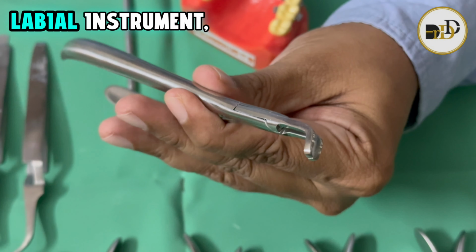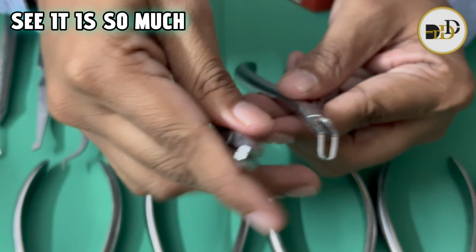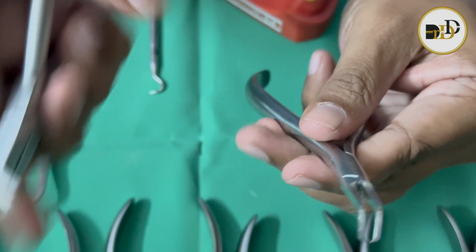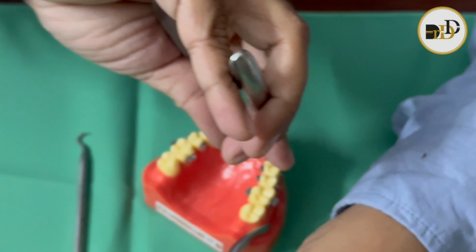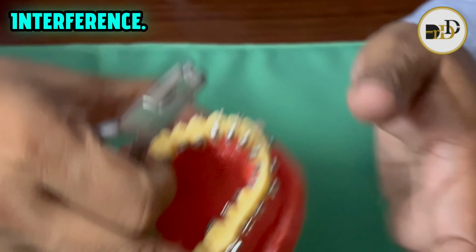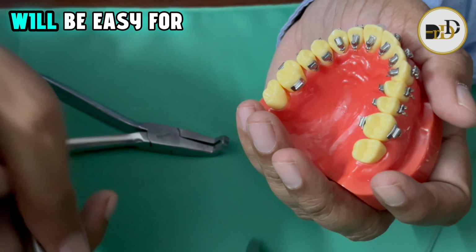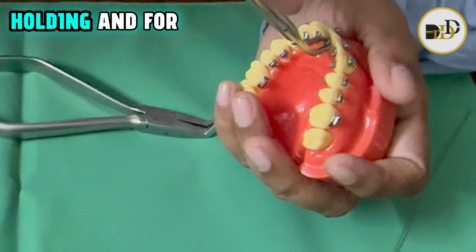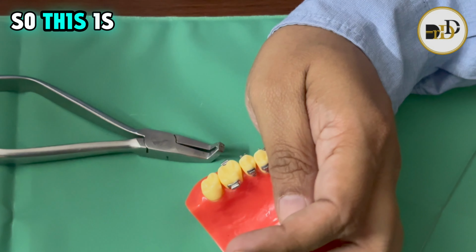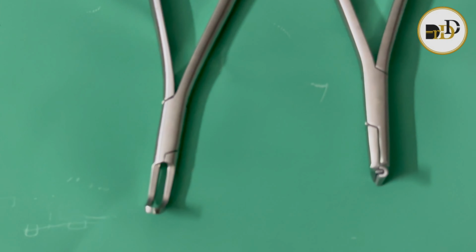If we see the labial instrument, it is so much bigger that it can't hold the bracket; it comes into interference. But with this, it will be easy for holding and for debonding. So this is the debonding plier.